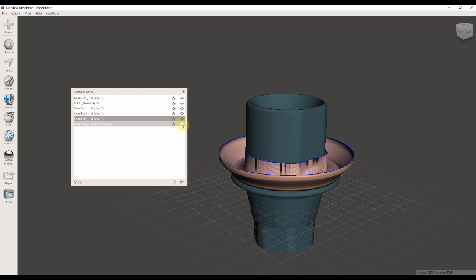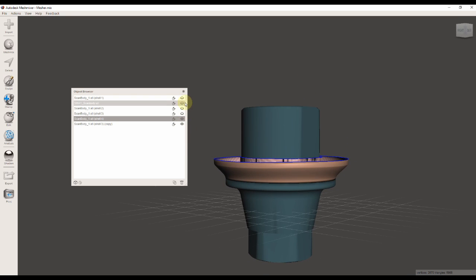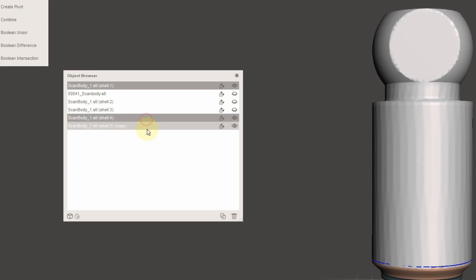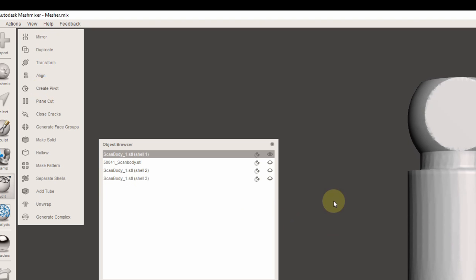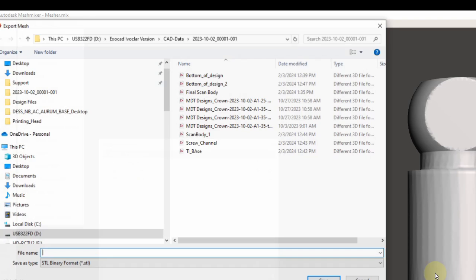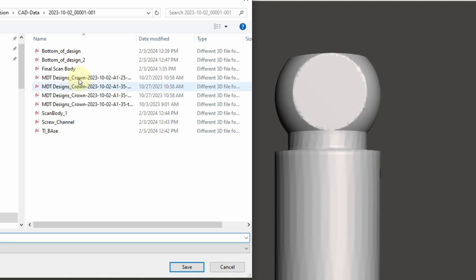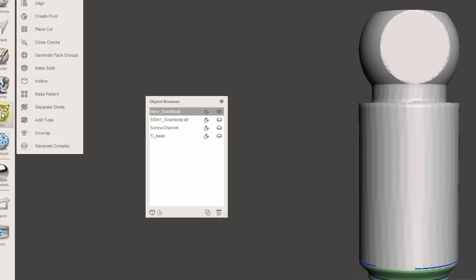For the most part, the cleanup of the individual parts is done. Now we have to select them and combine them to one piece. After that, we can export them to one STL, and I'm going to call it Final Scan. I'm going to separate the parts because I want to continue with my modification.